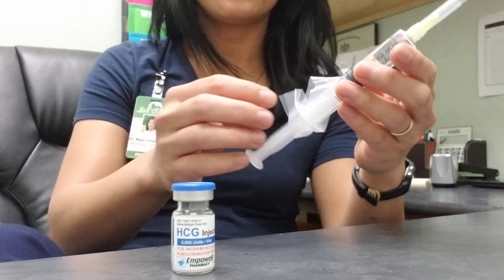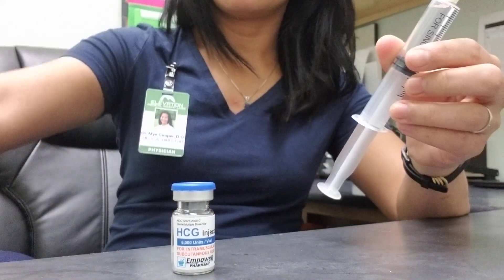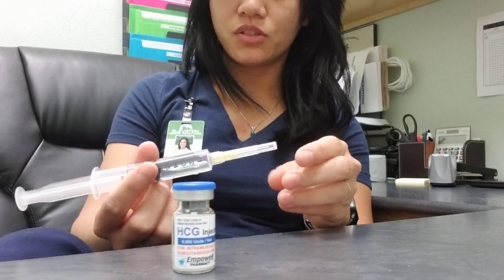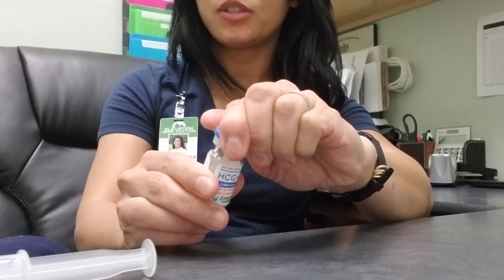What you want to do is remove the cap from the plunger. The tape is there to prevent displacement of the solution. You would uncap this using the side of your thumb, and the lid just pops right off.